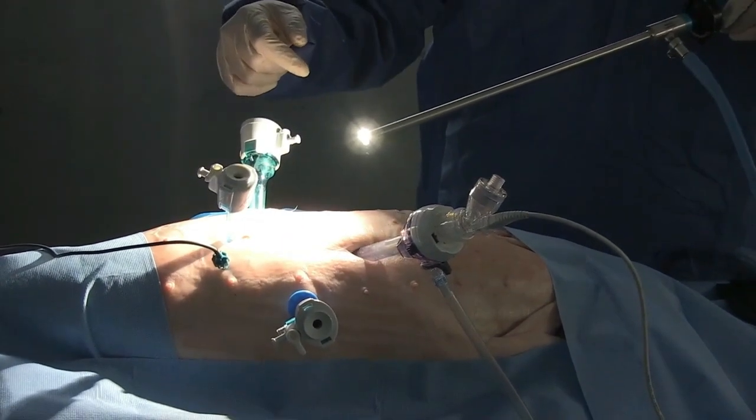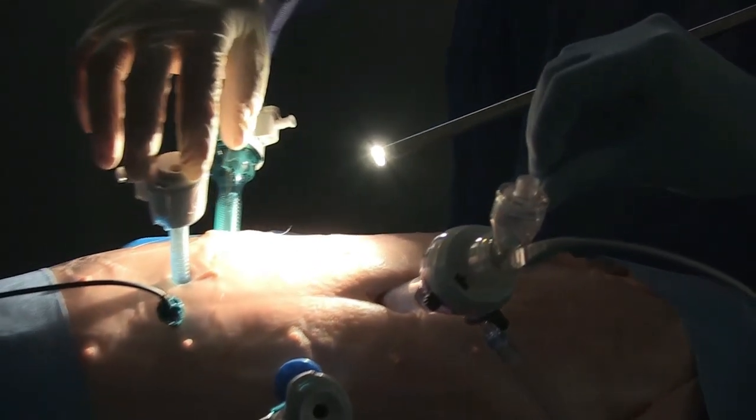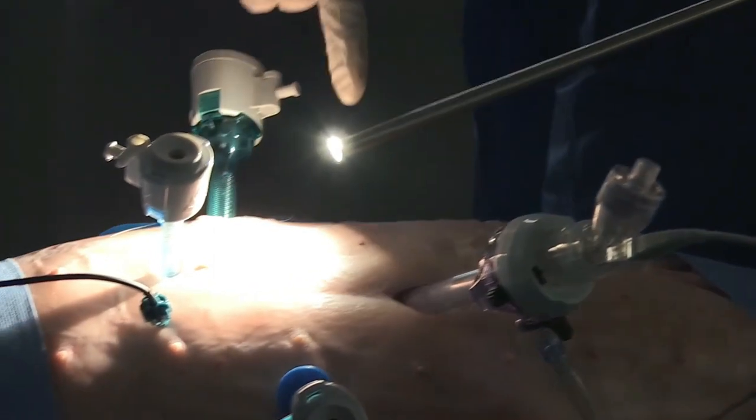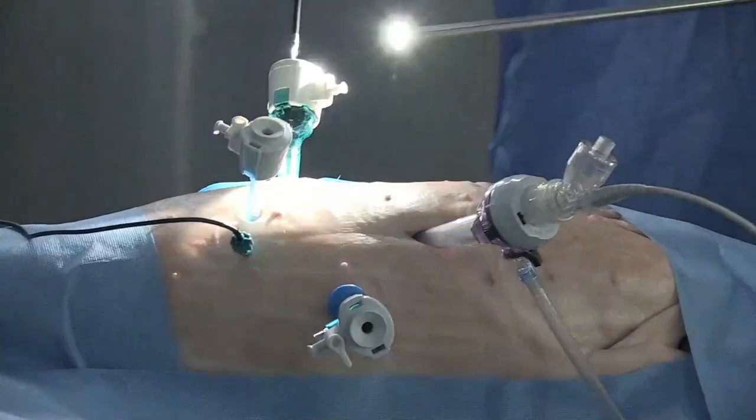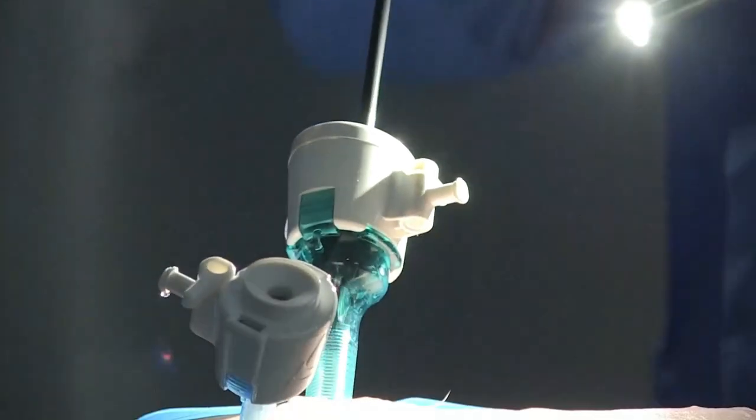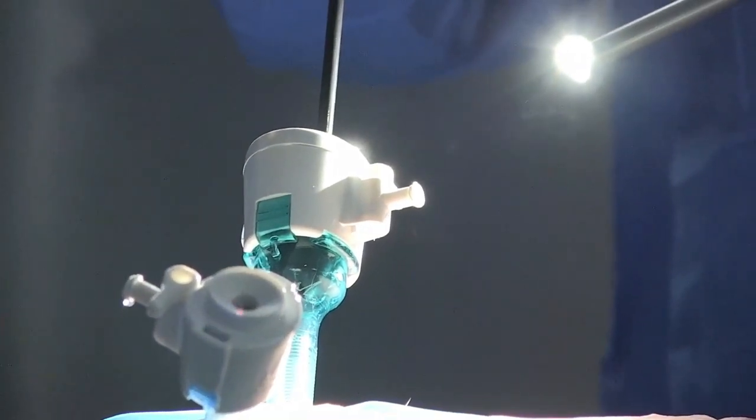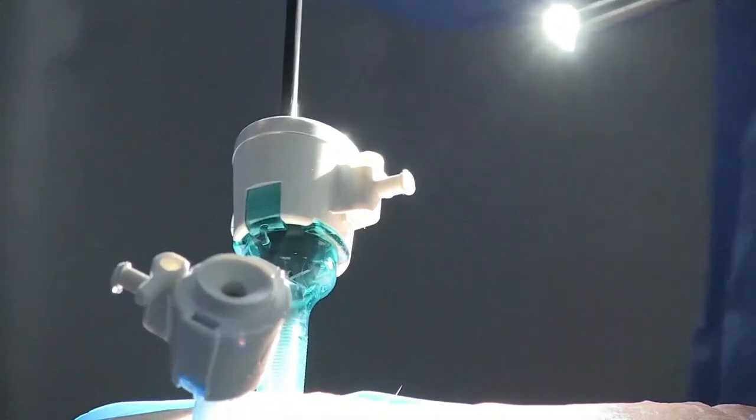To set up this demonstration, we used a high-fidelity pneumoperitoneum model with carbon dioxide insufflation to a pressure of 12 mmHg. A specific laparoscopic nebuliser from Aerogen was used to humidify the intra-peritoneal gas. This makes gas leaks visible by shining a light across the direction of gas flow.